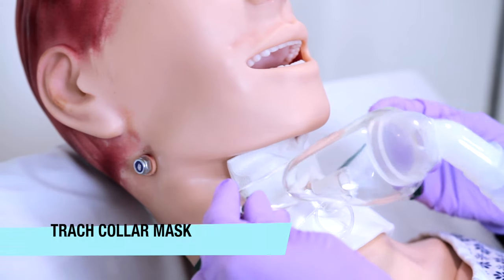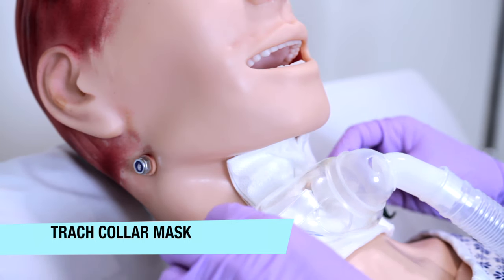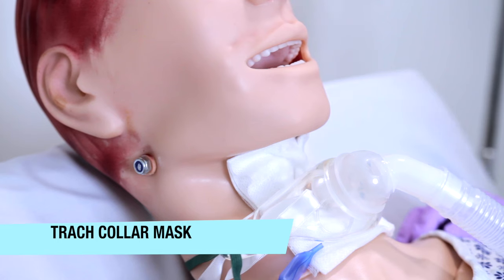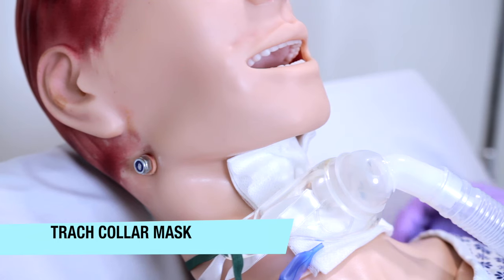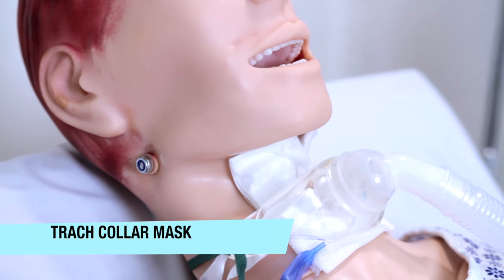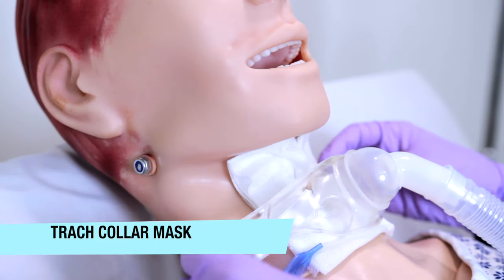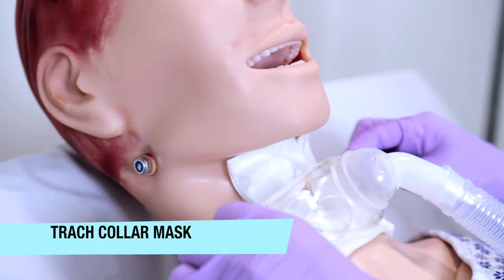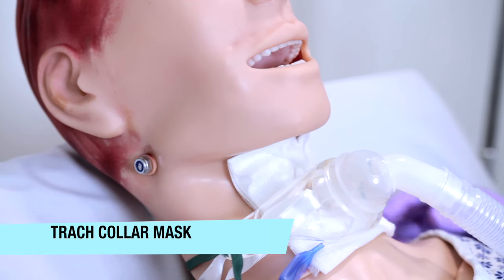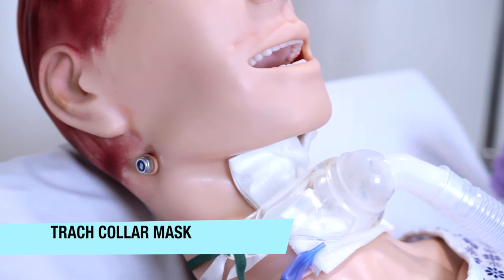This is a trach collar mask. The trach collar mask is categorized through an aerosol method that is attached to the patient's tracheostomy and adjusted to fit accordingly. The trach collar is connected to a wide bore tubing that receives aerosolized oxygen from an oxygen source, such as a jet nebulizer. Some disadvantages with the trach collar: it can put unnecessary weight on the tracheostomy tube, causing injury and stress to the site.